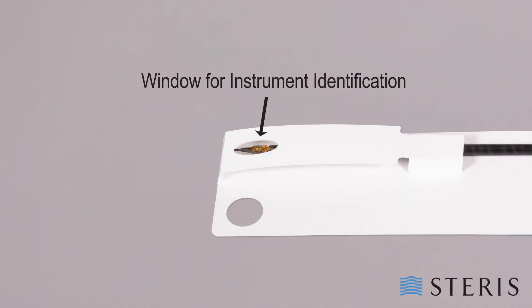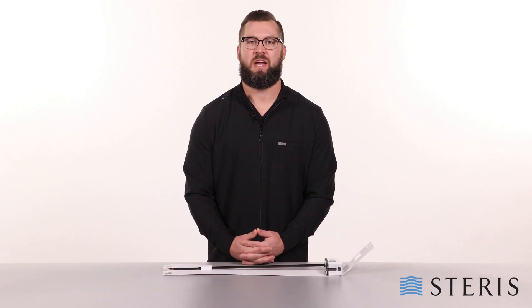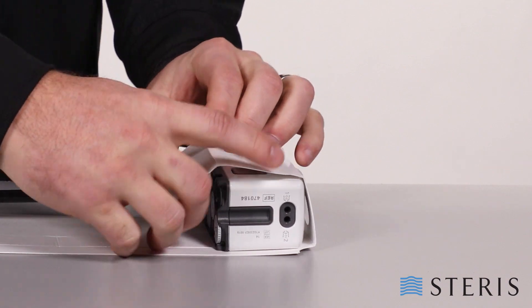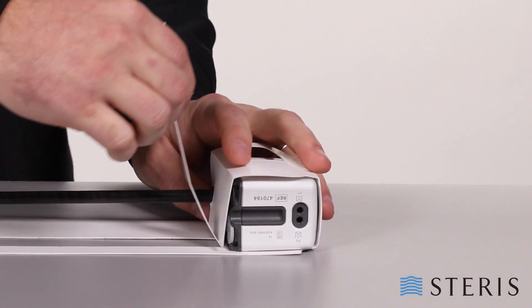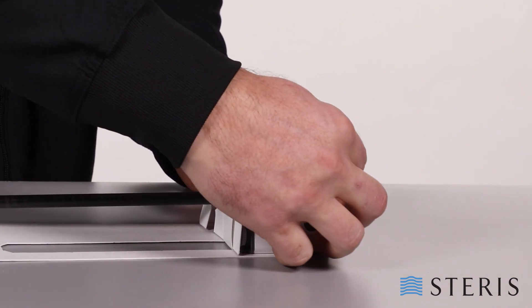The robotic arm instrument card features a window for instrument identification. To build the housing around the proximal end of the robotic arm, fold up the card around the robotic arm and position the keyhole eyelet around the shaft of the robotic arm instrument. Pull the belt up from the base of the card and insert it through the slit in the housing to secure the proximal end.